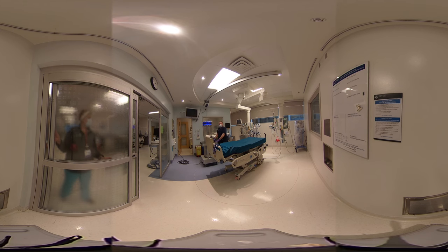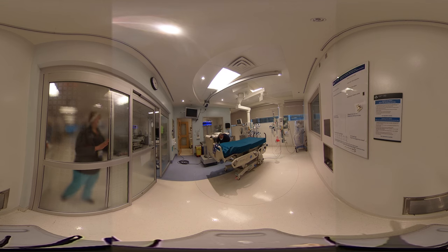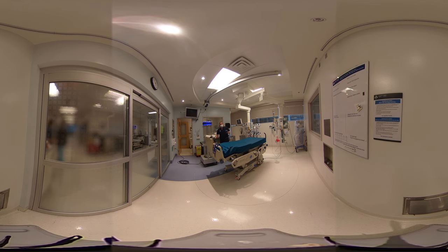Basically it's the center unit and then you have four of these sensors, which pick up the radiation from the machine and indicate that disinfection is actually going on. They're strategically placed depending on the configuration of the room. Every room is different, and in this type of room we have a small toilet which we also have to disinfect. The other sensors will be placed about the room, so let's start.